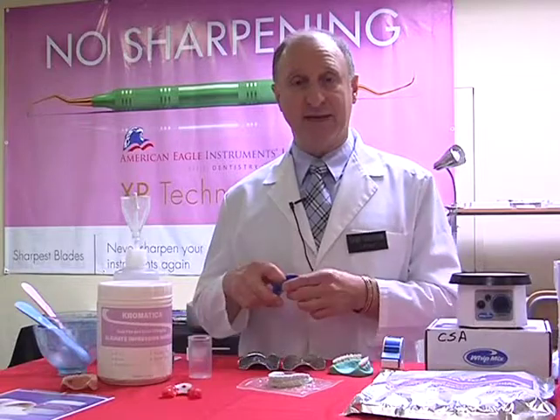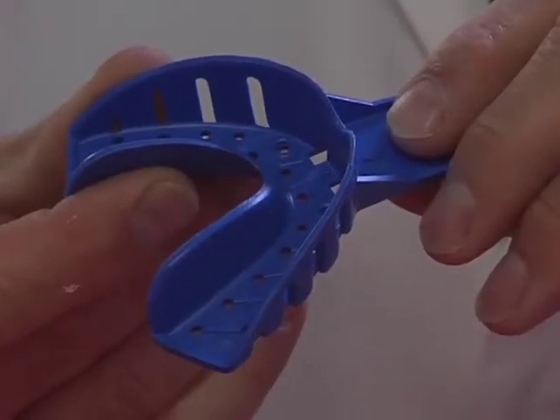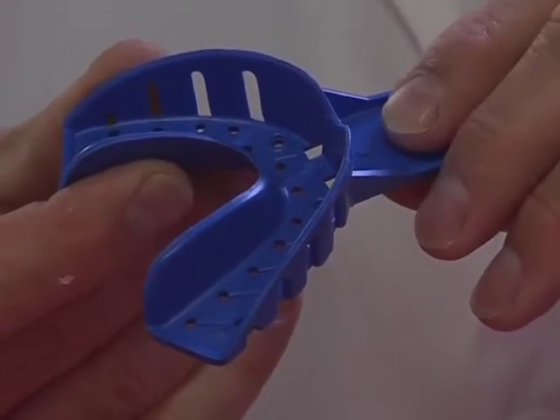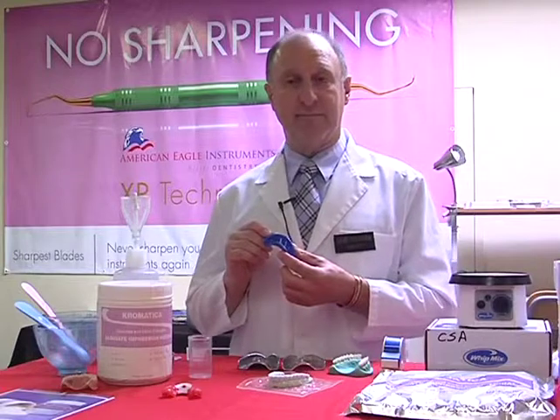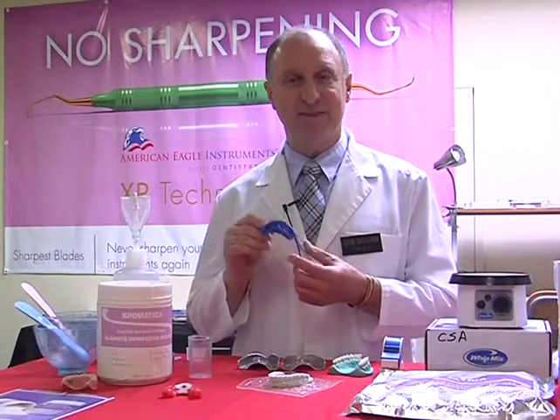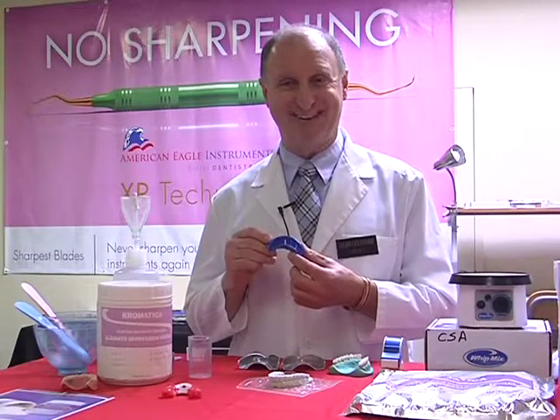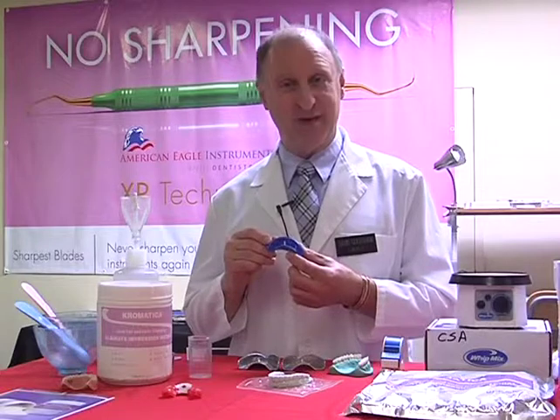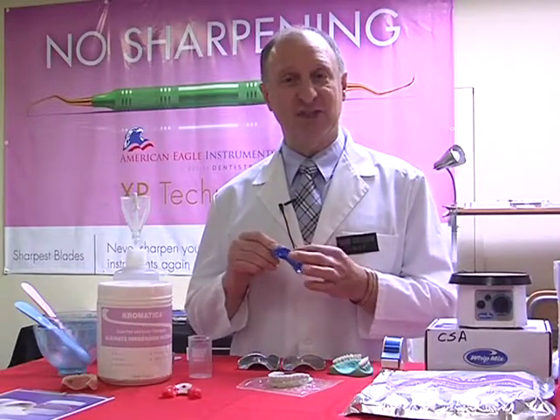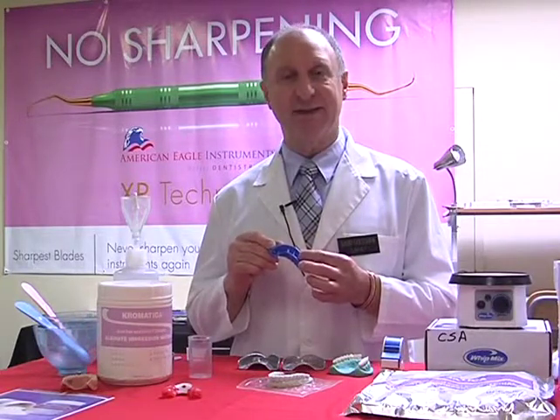Now let's have a quick look at our plastic trays, and these are considered disposable. They come in this case as a half arch, of course, full impression trays. The difference between these is I go into a lot of dental offices and I see what's happening. They actually put these into a cold soak solution overnight, whereas they're considered disposable. Disposable means you throw it away after each use. The problem being that since it's a plastic, a shiny surface almost, they don't get quite the adhesion that you normally need to use.